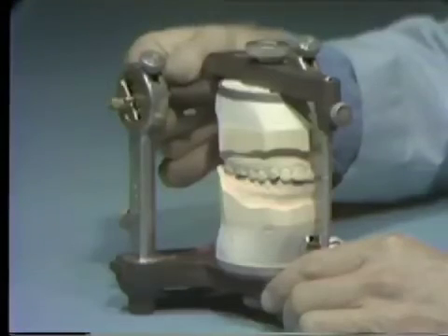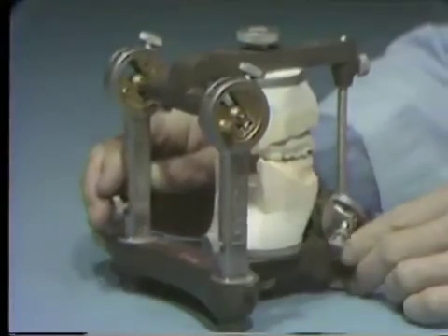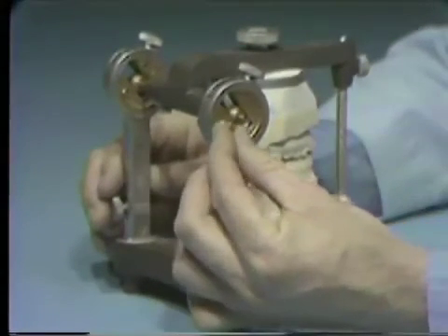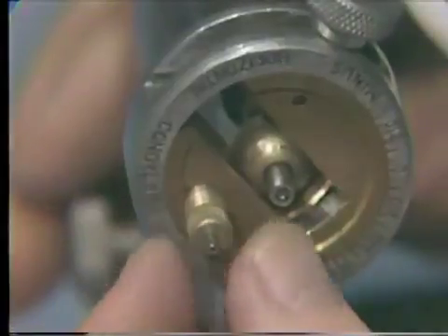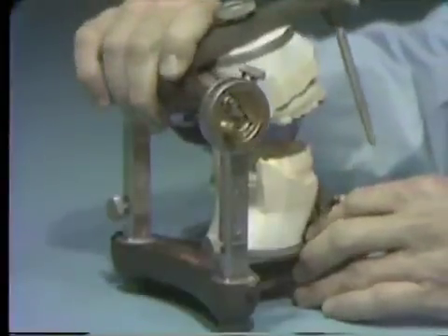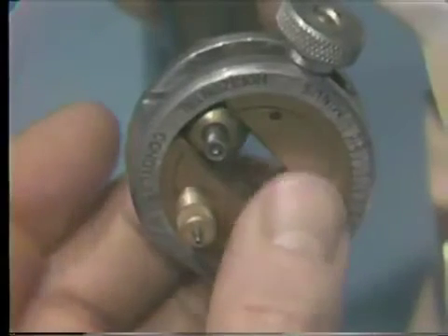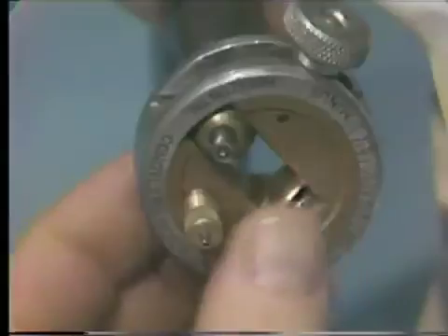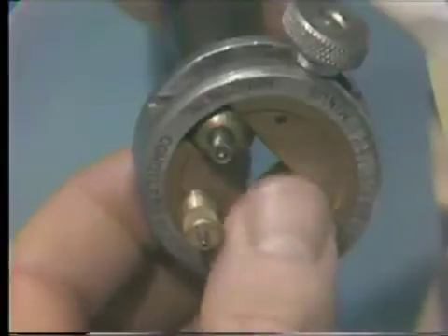Next, loosen the thumbscrew on the inner surface of the condylar guidance. Also, loosen the centric lock so that the condylar element can be moved away from the condylar stop. Now, remove the centric stop thumbscrew along with the cylindrical spacer.